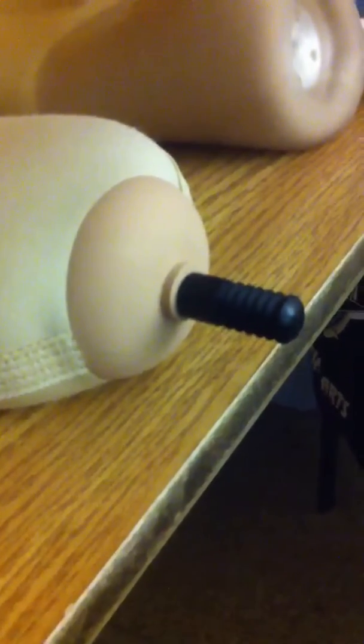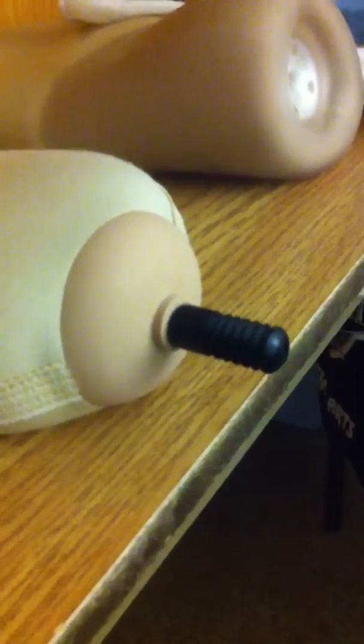I don't know if you can see that in this somewhat poor lighting, but it's notched and ridged so it will actually click into the receiver on the prosthetic leg and then be released by the button that I showed earlier. It's got a cotton mesh type of material covering the inner silicone body of the sleeve that covers my leg, and I'll show you that.